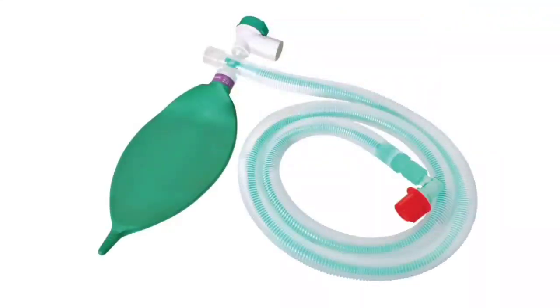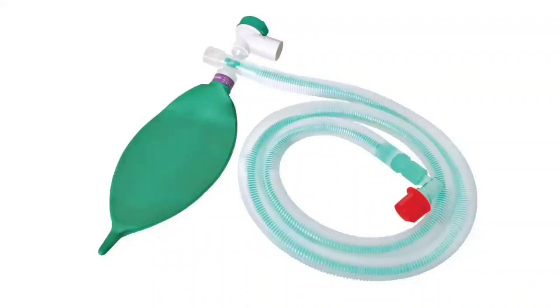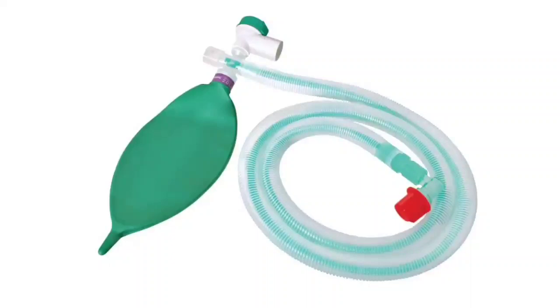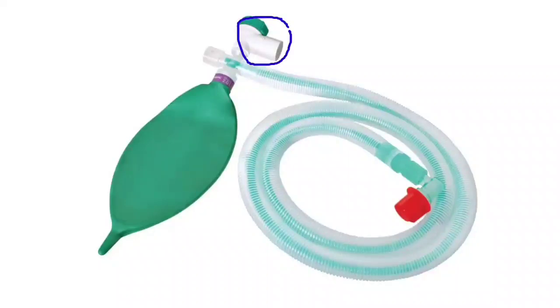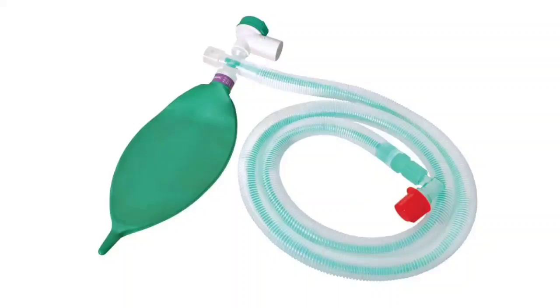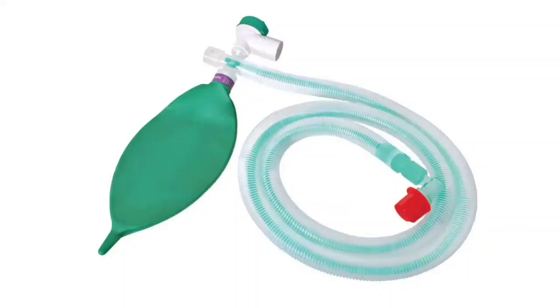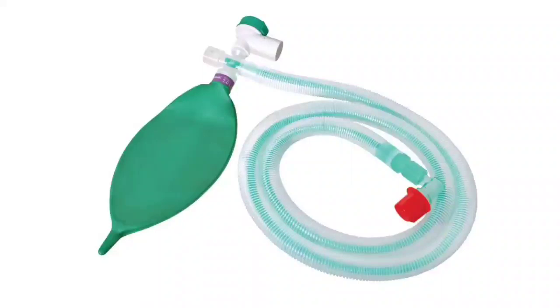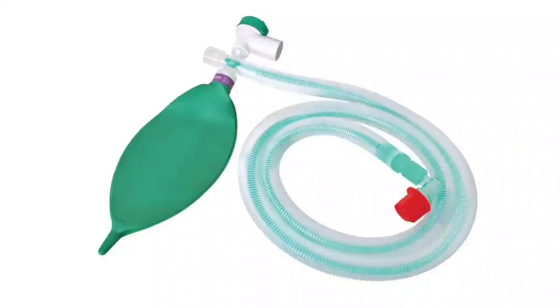This is a Mapleson D circuit. It looks like a Mapleson A circuit but is different in many aspects. In Mapleson A, the APL valve is near the patient end, but in Mapleson D the APL valve is at the machine end, as you can see in the picture. Mapleson D is a coaxial circuit — coaxial means tube within a tube. In the picture you can see a green tube inside a transparent tube: fresh gas flows toward the patient through the green tube, and expiratory gas returns backward through the wider transparent tube. The green tube has a diameter of 6 mm and the transparent tube is 22 mm wide.